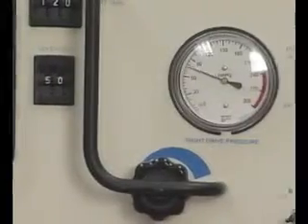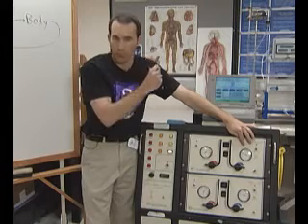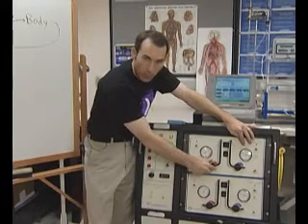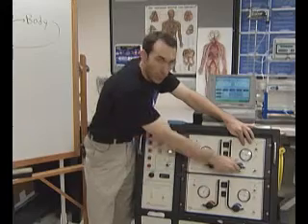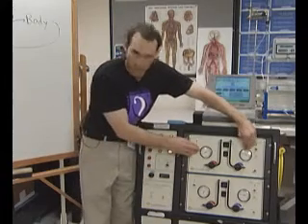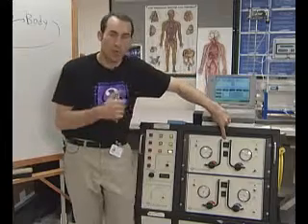The knobs you see here — this would be the left pressure and this would be the right pressure. We make changes here if we're having a problem with fully ejecting. If we're missing the eject flags on our graph, we could increase the pressure on the left, the right, or both — whatever needs to be done. That has to do with pressure and the eject flags.